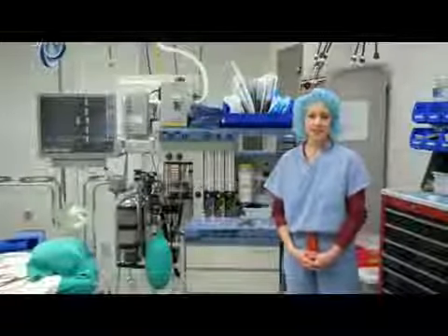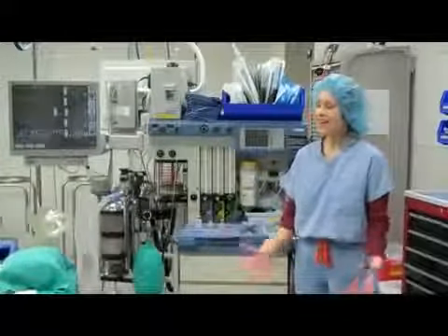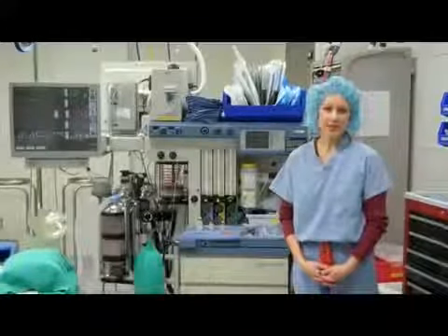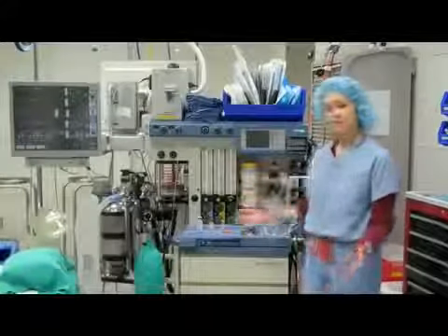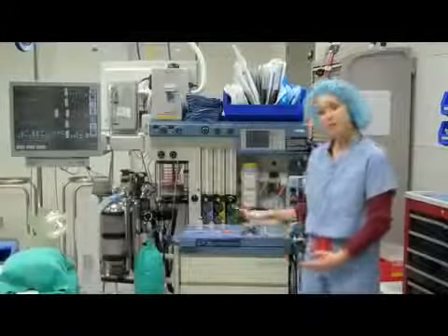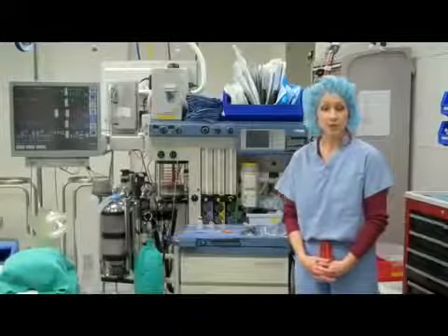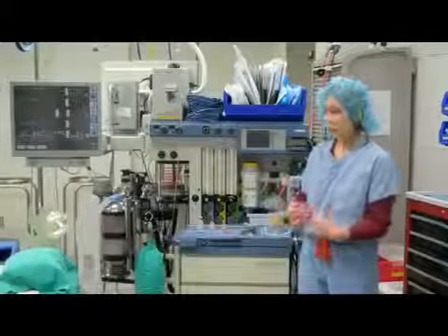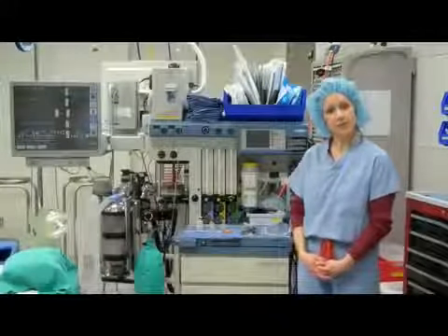My name is Alexander Anderson, and I am one of the nurse anesthetists here at Grinnell Regional Medical Center. And this is our operating room. I would like to take the opportunity today to talk to you a little bit about general anesthesia, about the machinery that we use, and about the medications that we administer in order to provide patients with their anesthetics for surgery. So what we're going to do is walk through how we would go about performing a general anesthetic for a patient coming in for surgery.